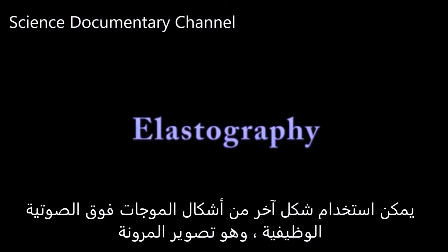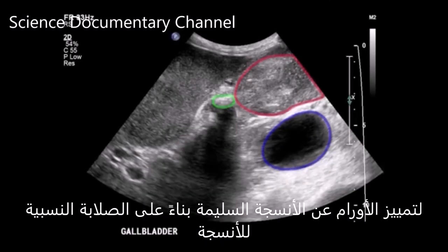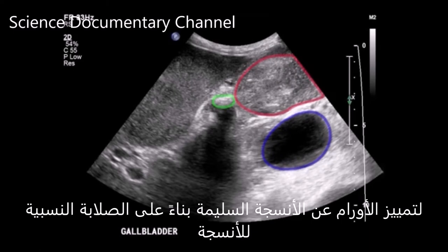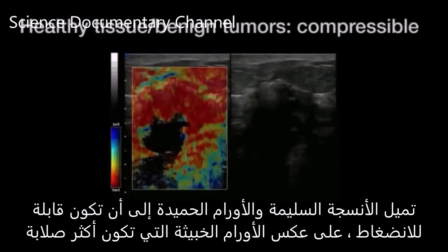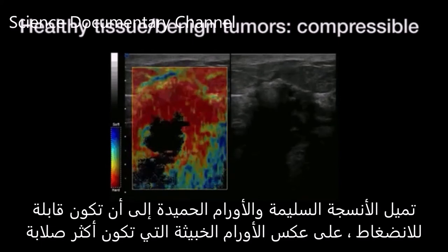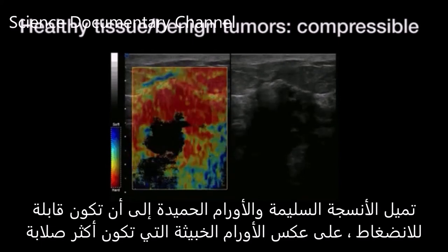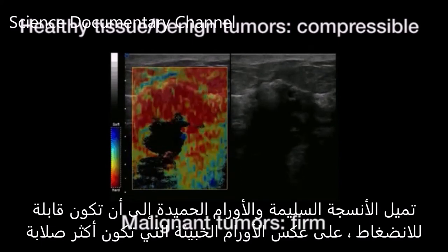Another form of functional ultrasound, elastography, can be used to differentiate tumors from healthy tissue based on the tissue's relative stiffness. Healthy tissue and benign tumors tend to be compressible, unlike malignant tumors, which are more firm.